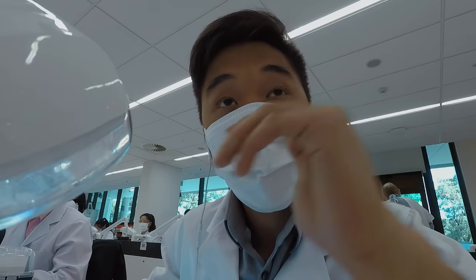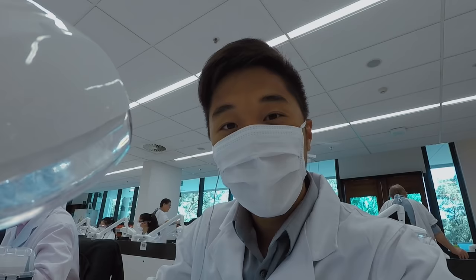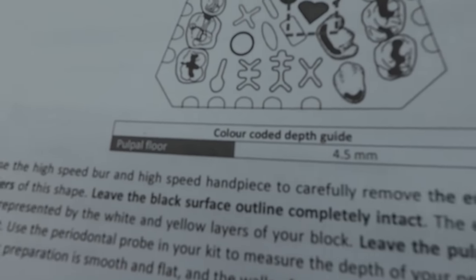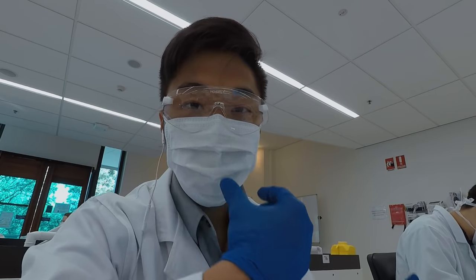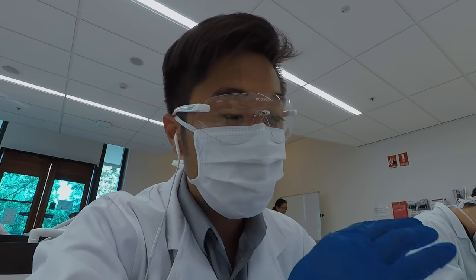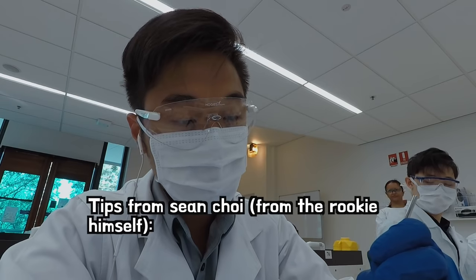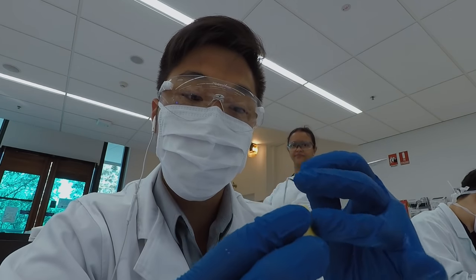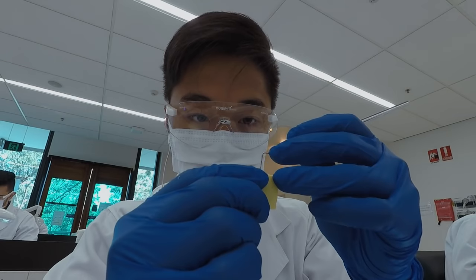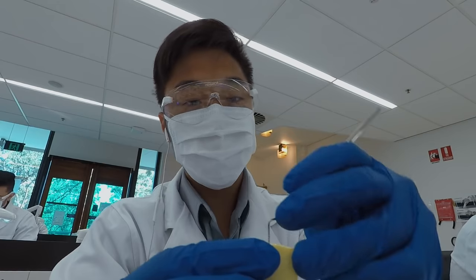Today I'm really going to try to focus on my ergonomics, because last day after my drilling my back and neck were terrible. I'm drilling just up to the 4.5 millimeter mark, which is just up to this red line here. If you're a first-year student watching this and just starting on drilling, here are a few tips: number one, always try to have a stable finger rest with your ring finger, and also try to keep your drill straight and not leaning to the side.